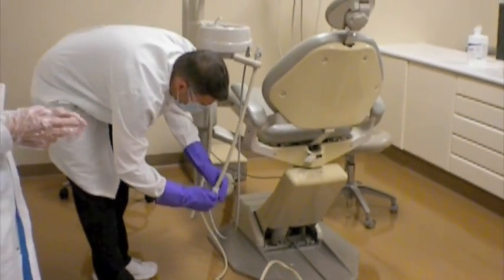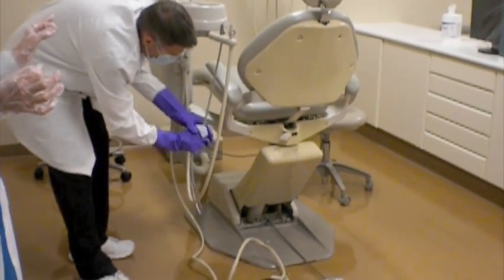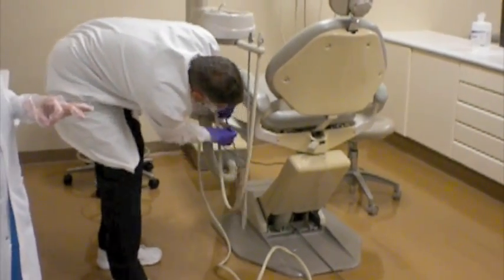So 6 inches down and put a little pressure on them so that they don't fall out of the receptacles onto the floor. 6 inches down on the slow speed, all the way towards that unit. See how that's a single motion moving towards the unit.